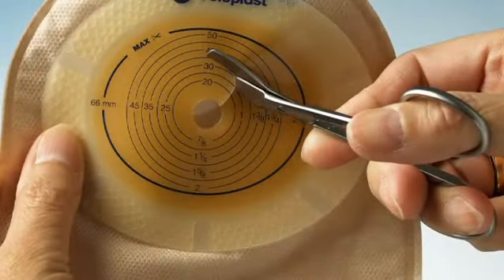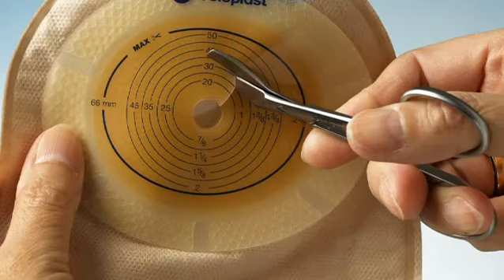Let's have a look at how to prepare the ostomy adhesive before application to the skin. The hole in the adhesive must fit precisely to the shape of the stoma.